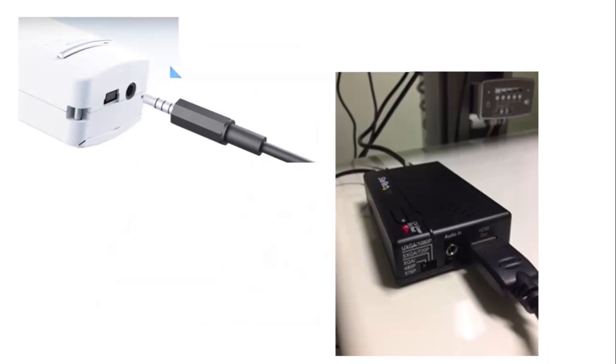After the appropriate lens has been attached, you will need to connect the converter to the telehealth unit in order to share images and live video during the appointment.